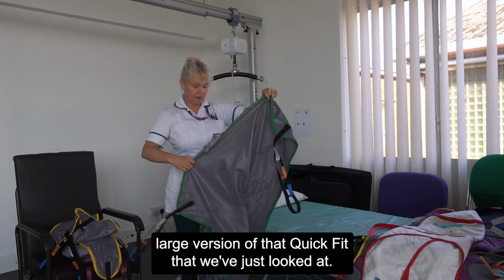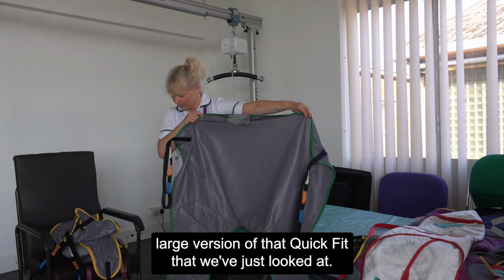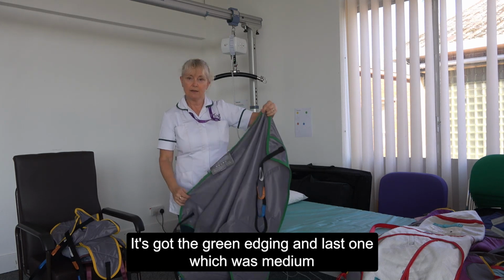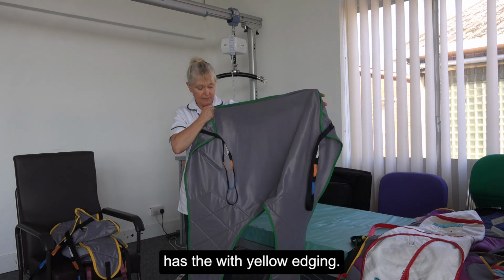This is a large version of that quick fit that we've just looked at. So it's large, it's got the green edging, and the last one, which was medium, has the yellow edging.